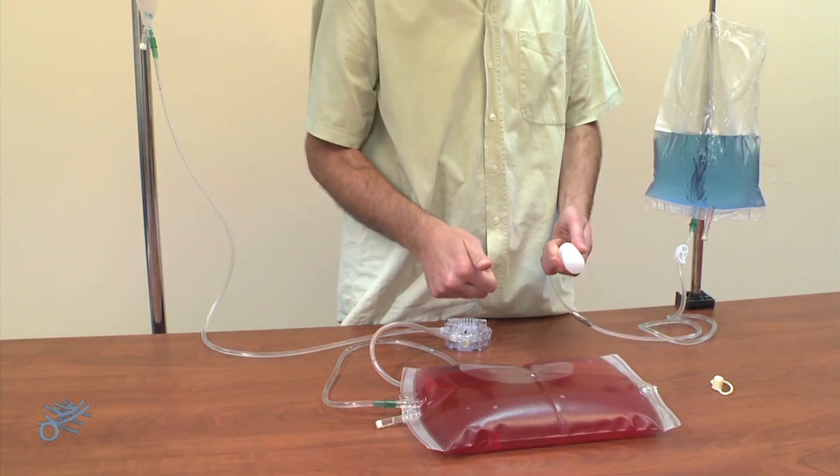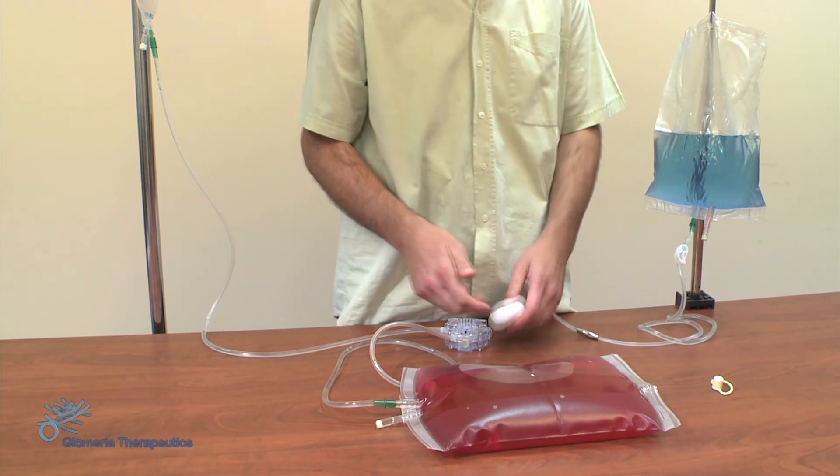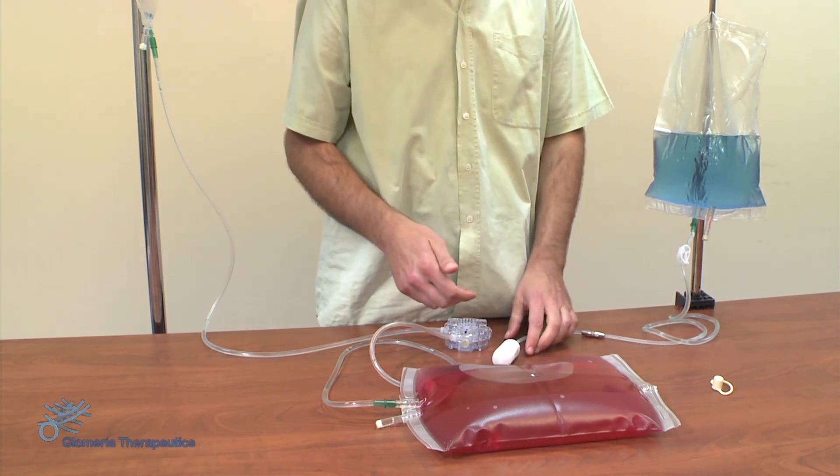With this, we have finished the exchange cycle during which the inside of the peritoneal catheter has never been in contact with the outside.